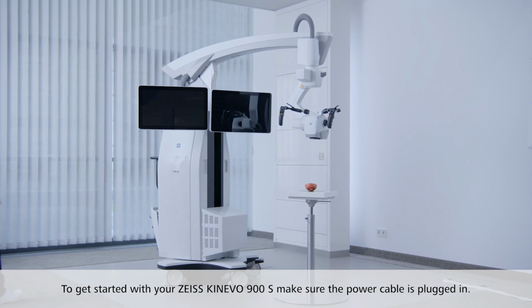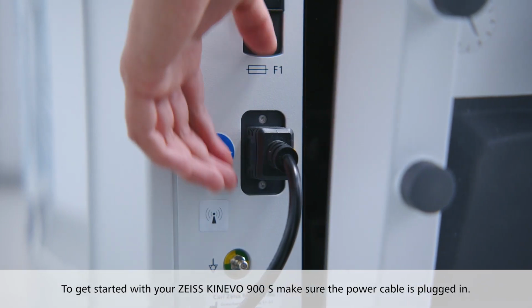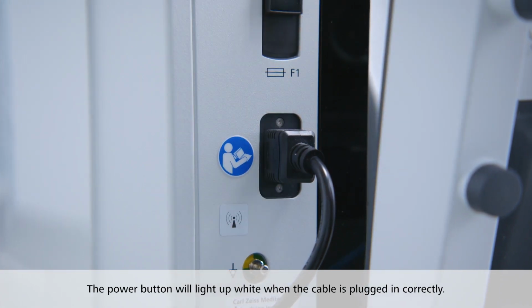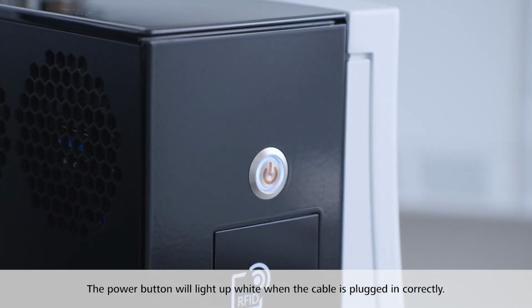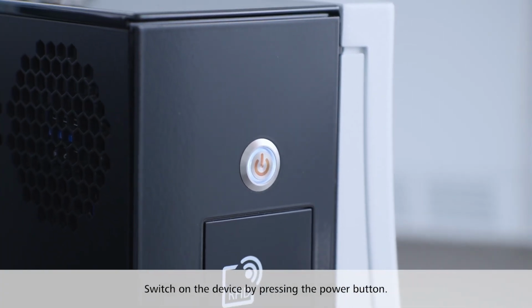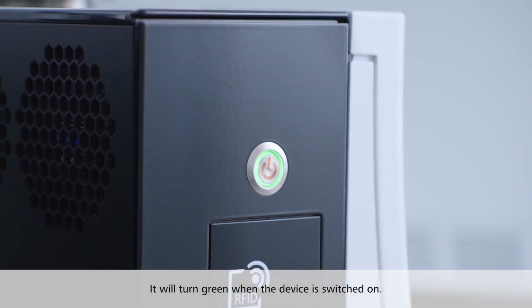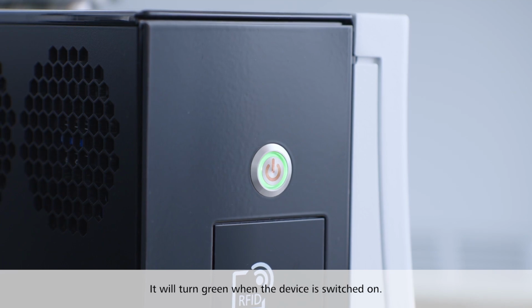To get started with your ZEISS KINEVO 900S, make sure the power cable is plugged in. The power button will light up white when the cable is plugged in correctly. Switch on the device by pressing the power button. It will turn green when the device is switched on.